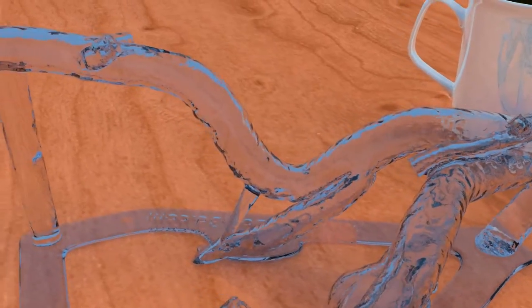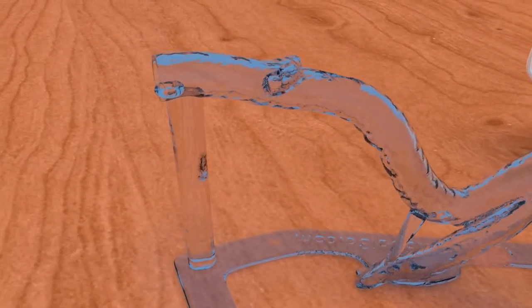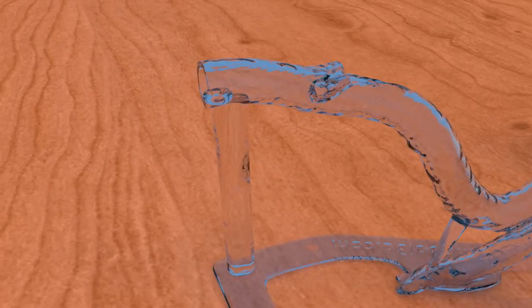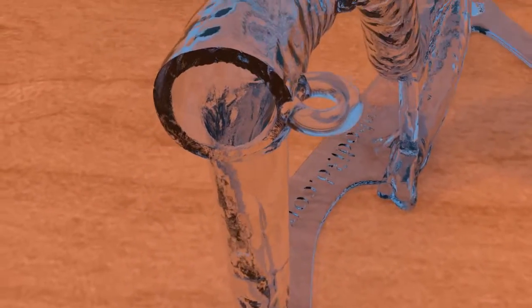The bilateral external iliac arteries and common femoral arteries are replicated in detail. Sheath ties are present at the common femoral arteries, allowing vascular sheaths to be secured there. Because the common femoral artery is the most common real-world arterial access point, sheaths here will most accurately simulate a real procedure.